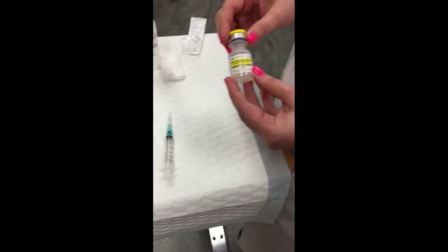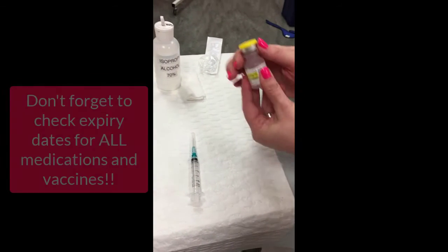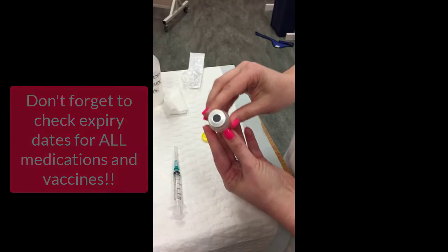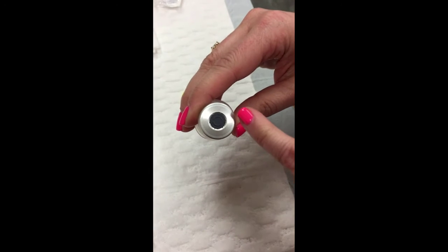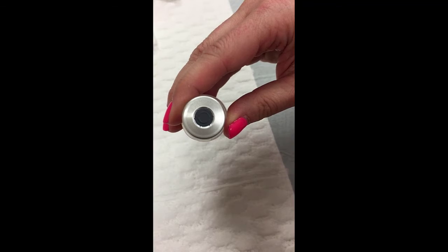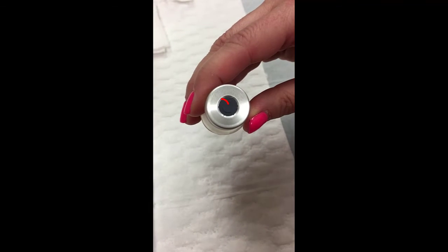Now I've already checked to make sure that my medication isn't expired, so I'm ready to go. So I'm just going to take my thumb and push that off. Here you can see the rubber stopper, and you'll note that there is a circle within that rubber stopper. You're going to insert the needle within that circle when you're drawing up the medication.